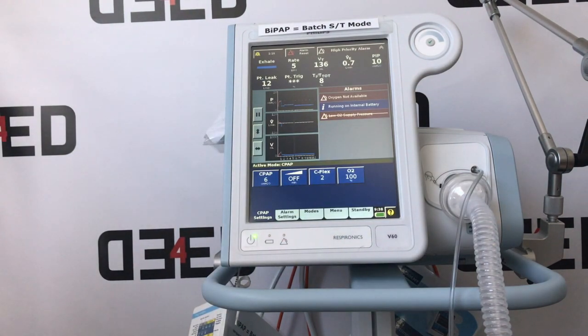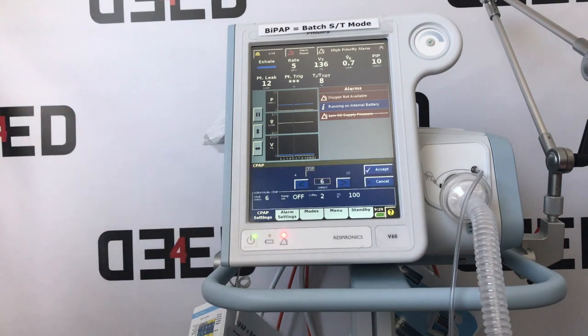Now you can see the active mode is CPAP. We have less options here because this is just one continuous airway pressure, not bi-level. Firstly, you'd select your CPAP pressure. This is your PEEP. So ask the doctor what they would like and dial up or down. You physiologically have a baseline PEEP of normally 4 centimetres of water, so you cannot go below 4. And be mindful of not causing high pressures at end expiratory by selecting anything above 25 and hit accept.